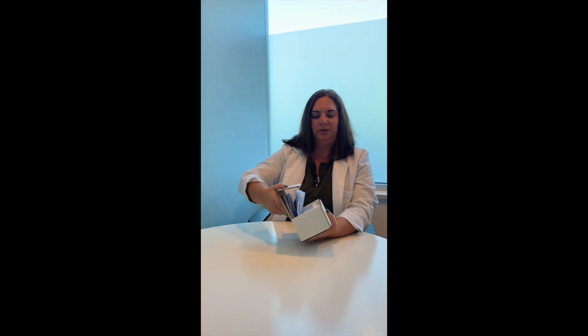Hello, I'm Dr. Alison van de Kerkhove, Naturopathic Physician with SIBO Canada. I just want to do a brief explanation on what you can expect when you get your SIBO test kit. So it'll come with a box. You'll have your return shipping label right on the box — it'll be ready to be shipped back to us. And inside will be all of the stuff you need to do your SIBO test.